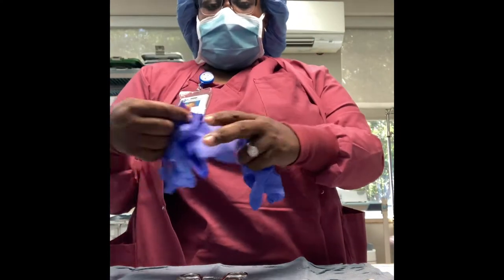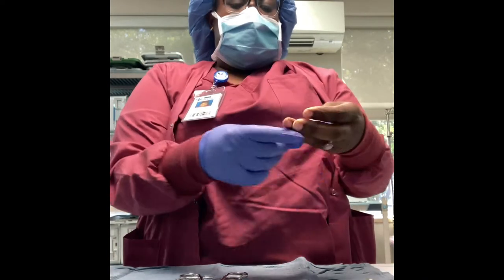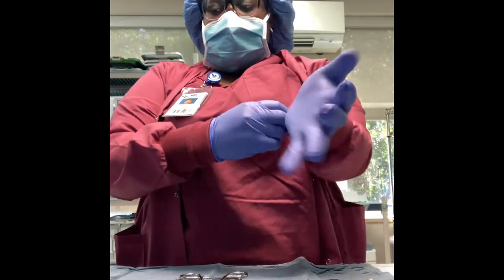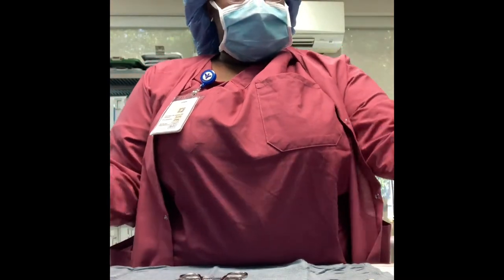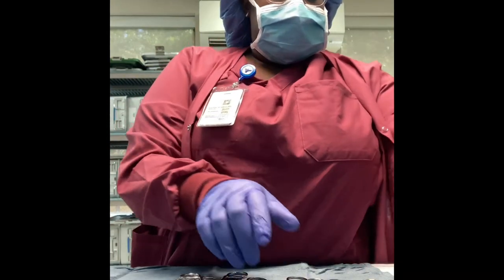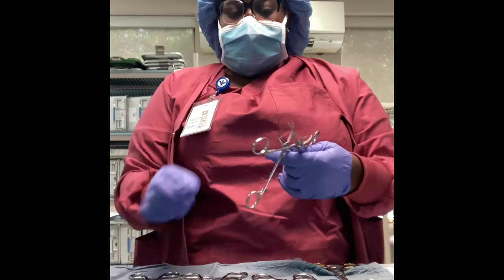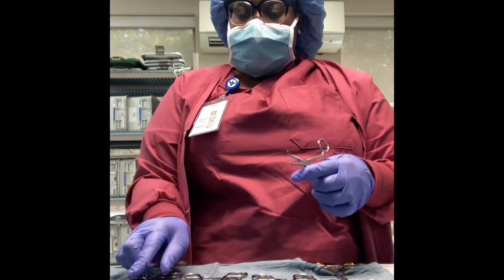Now I'm putting on some gloves because I didn't notice that some of the contents in the tray were wet. It's always good to wear your PPE and wear your gloves because you never know if a tray has blood, sutures — any of that can be in the tray. I should have started off wearing my gloves, but I'm going to continue wearing them throughout this video.